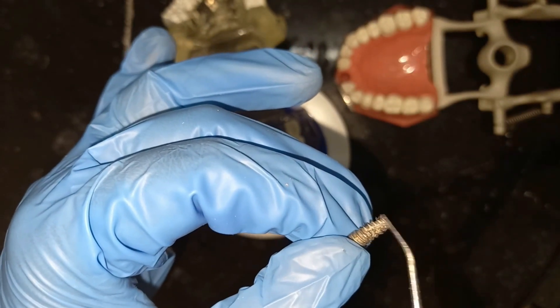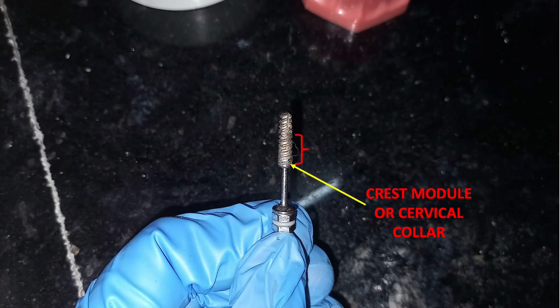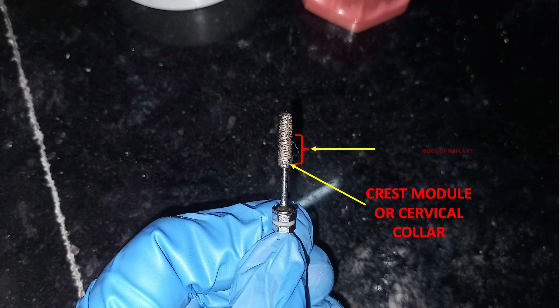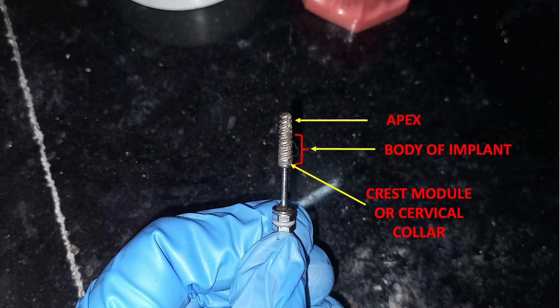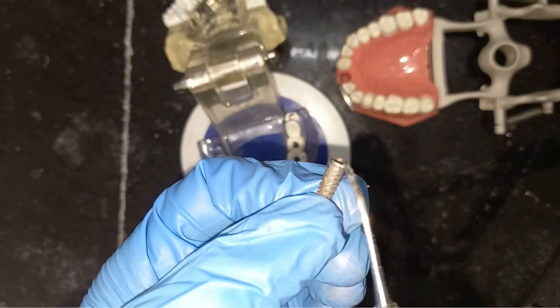To summarize: the part exposed in the oral cavity is the crest module or cervical collar, then after that we have the body of the implant, and the apical end is the blunt apex. The function of the crest module is very important because this part of the implant is exposed in the oral cavity.